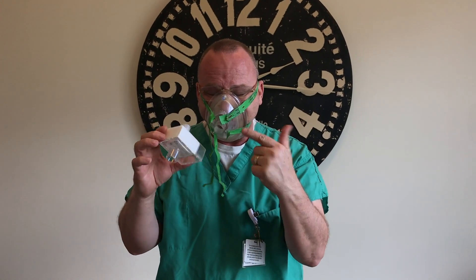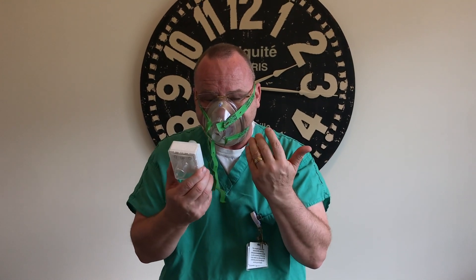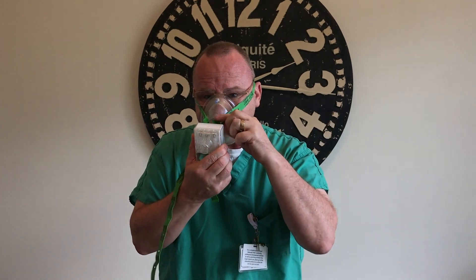When it comes time to take this off — I'm going to take this off now so you can hear me better — but this of course will still be on when you're coming out of the room. When it comes time to take it off, you will grab this and hold it and then pull on the green strand. Pull on the green strand and it comes off. This way you can still doff the equipment very cleanly.